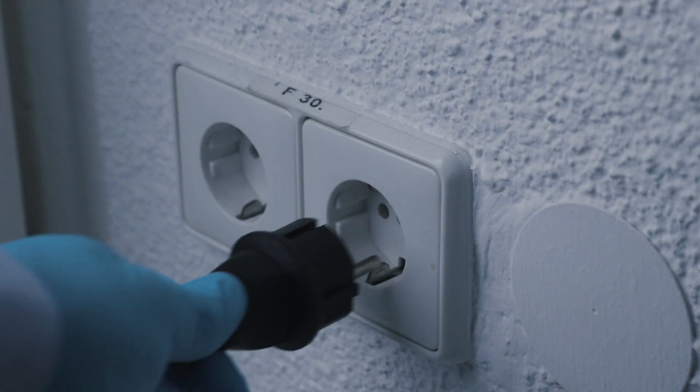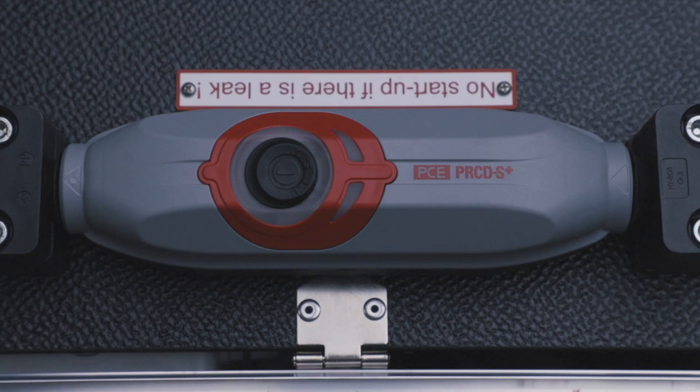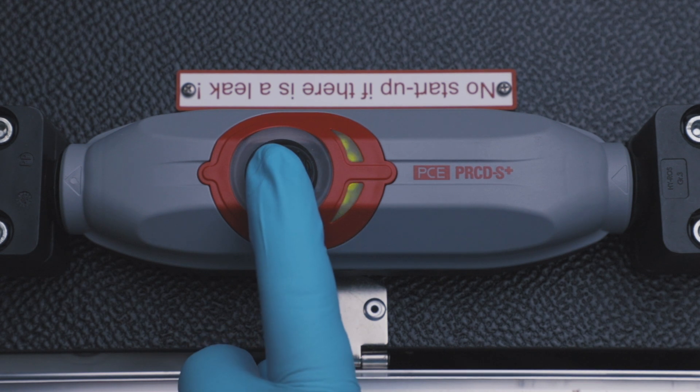Connect the ECMO trainer to a power outlet. Make sure to choose a socket with grounding. The protection switch will blink green if grounding is detected. If not, it will blink red. Switch on the protection switch by pressing a couple of seconds.